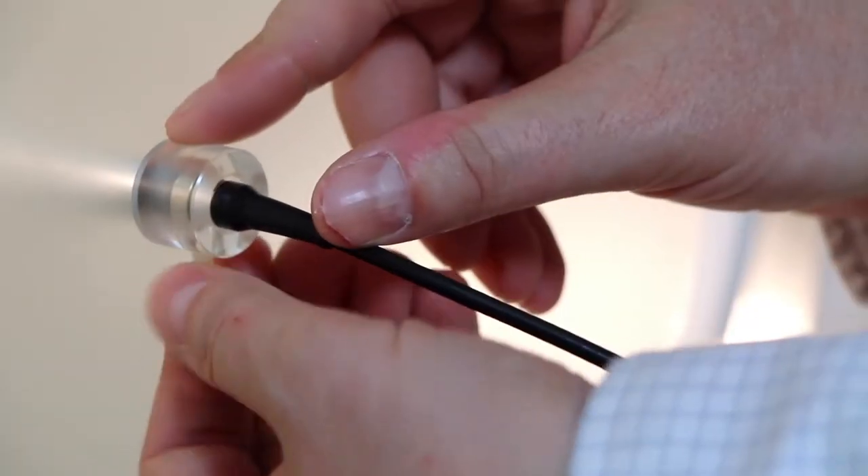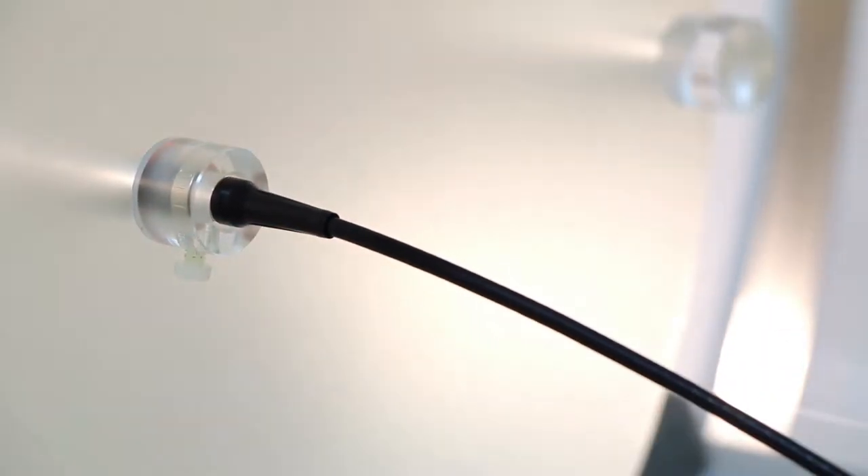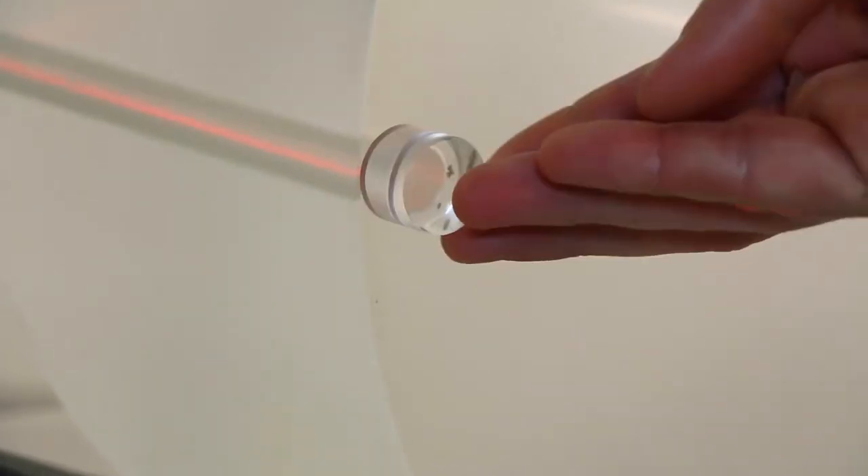For the RTI DCT-10 to fit to standard CT-DI phantoms, use the phantom adapter plug from RTI. Make sure that all the other holes in the phantom are plugged with PMMA rods.